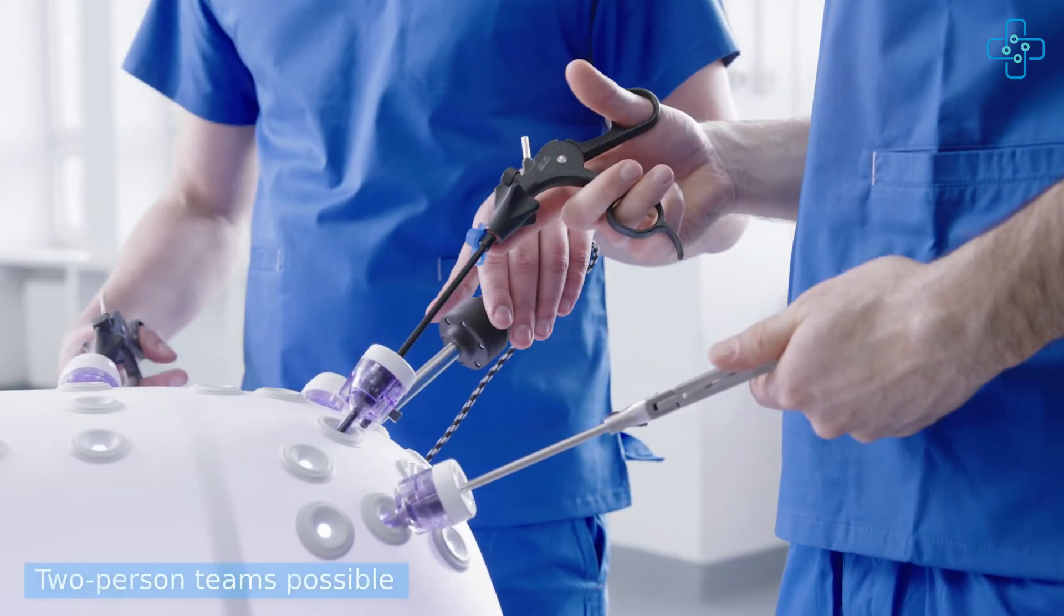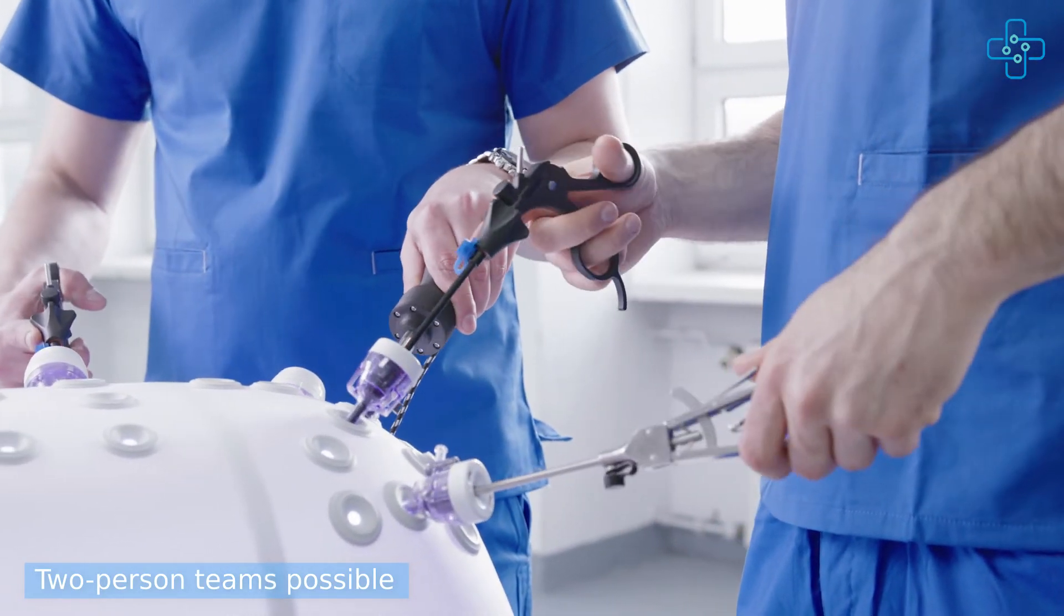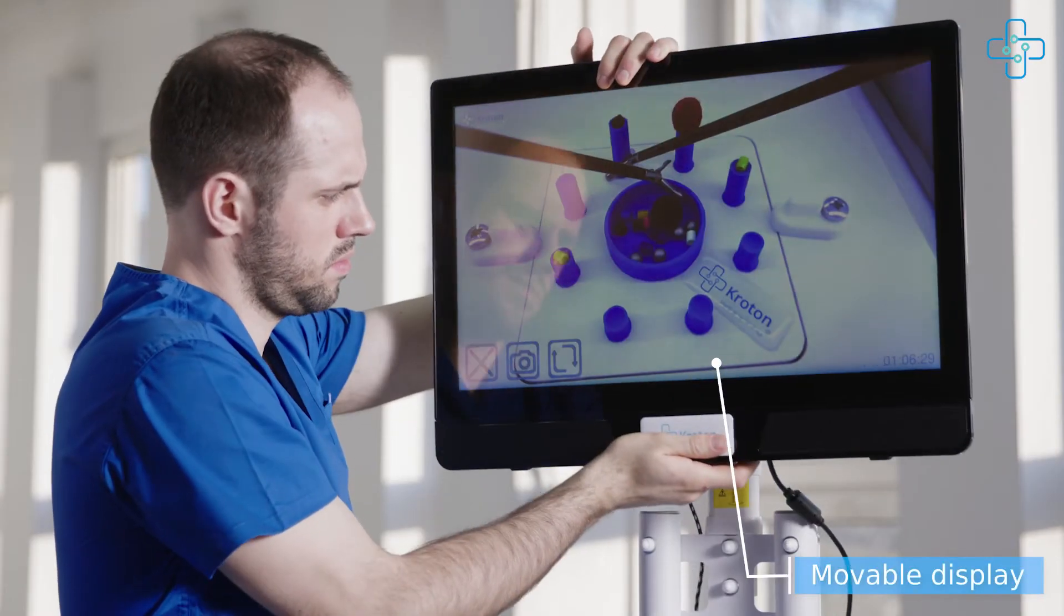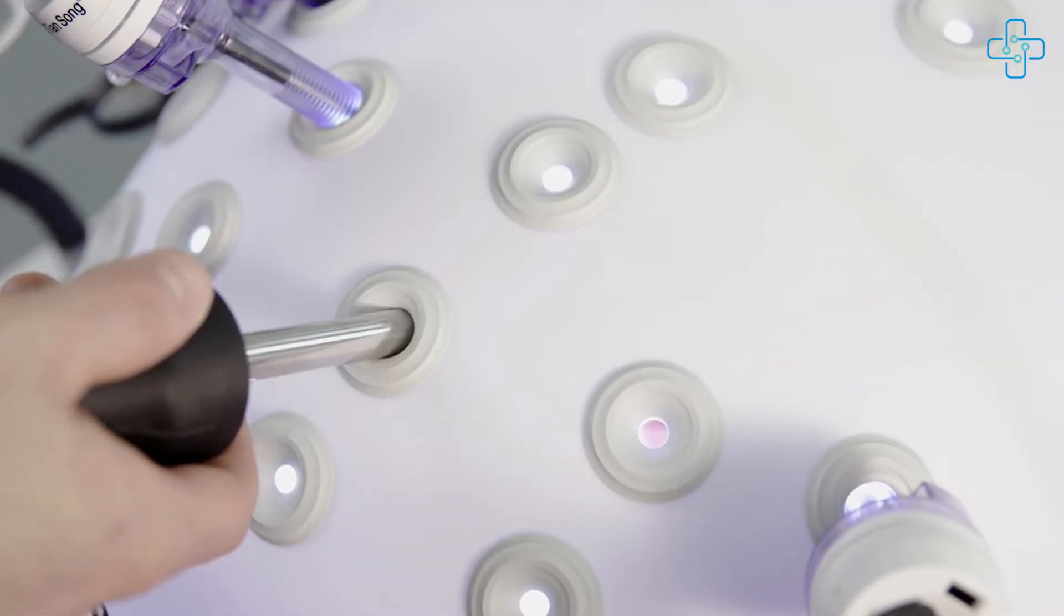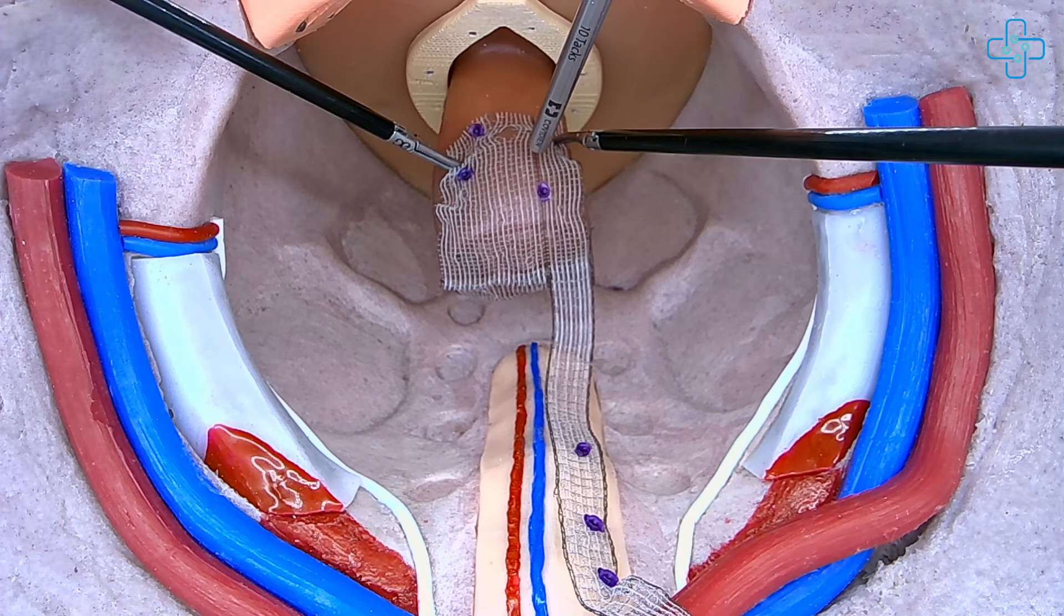The trainer device facilitates work in two-person teams exactly like during real-life procedures. The tabletop's height is adjustable, while the display is movable. And like during surgery, you can connect to an external mobile HD camera to record and analyze your surgical training afterwards.